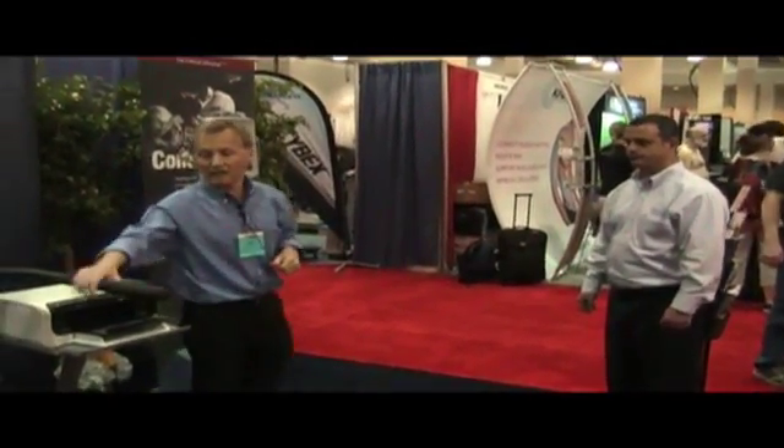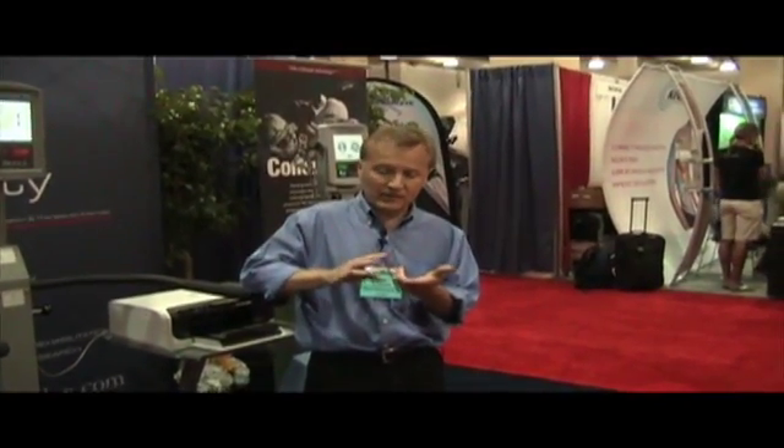With these products comes a very extensive marketing program. We can provide you with a full turnkey risk assessment, treatment, testing, and conditioning program. We have a community outreach type program — we provide you with the materials to educate physicians, attract discharge planners from hospitals to refer patients your way, reach out to the community for a full screening program, and then do an eight-week full screening conditioning program. So it's more than a product, it's a program as well.